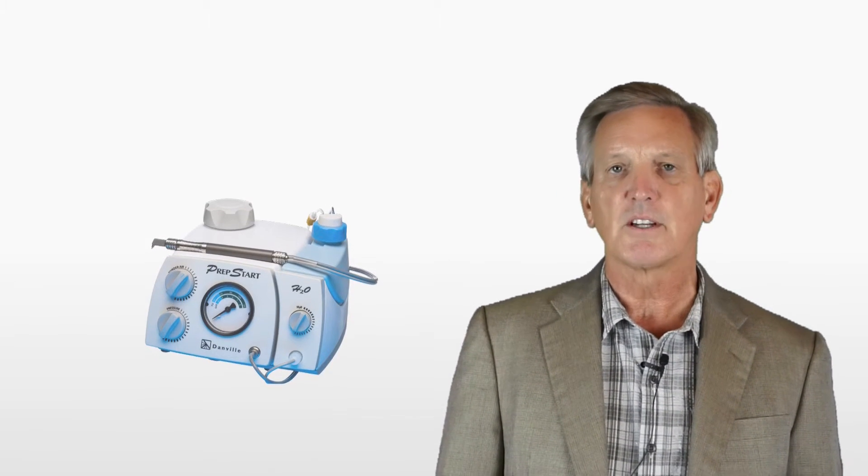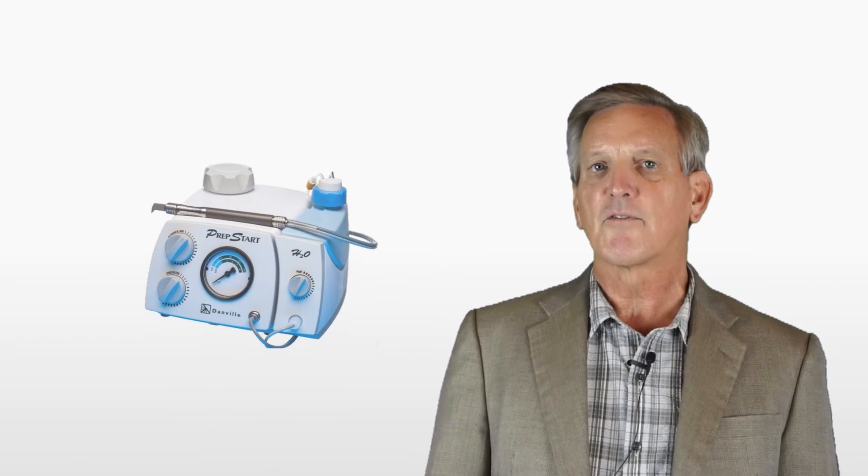The other products from Danville stand by themselves. They are the best in the market in terms of air abrasion. If you want to cut on teeth, the PrepStart H2O is just indispensable in a clinical situation. We can clean biofilm off of preps very effectively with either the MicroEtcher or the PrepStart H2O. Cementation becomes much easier when you don't have biofilm as an intermediary problem.